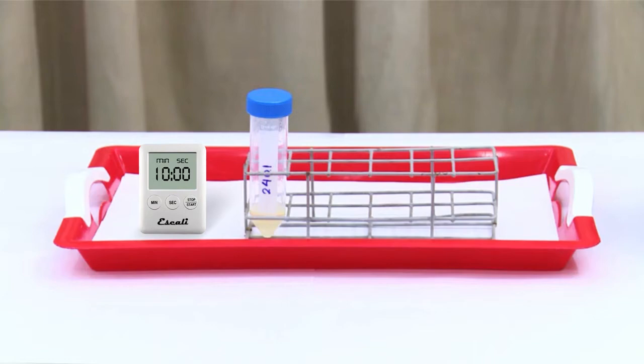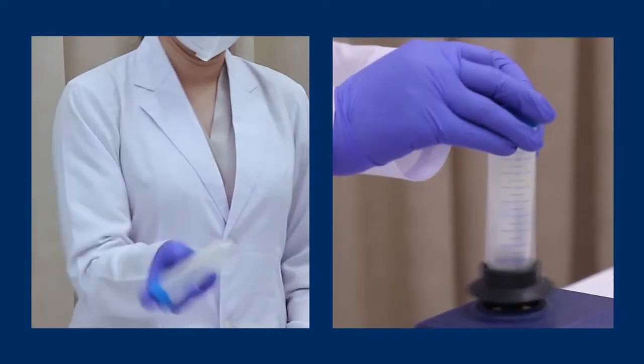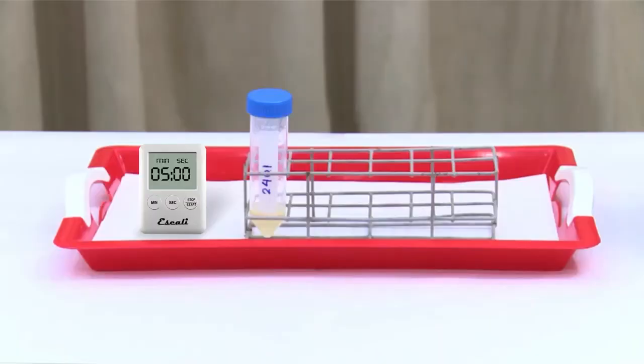Incubate for 10 minutes at room temperature. Shake again vigorously 20 times or vortex for at least 10 seconds until the solution dissolves well. Incubate for another 5 minutes at room temperature.